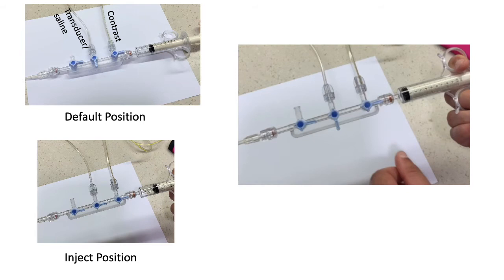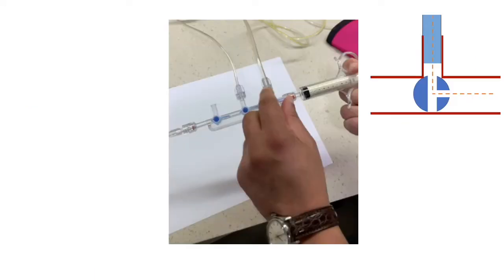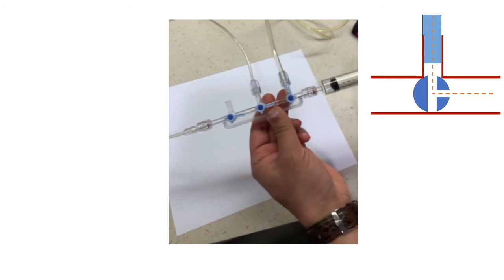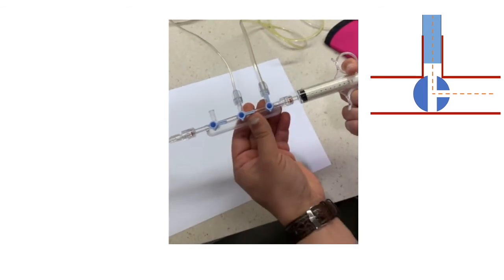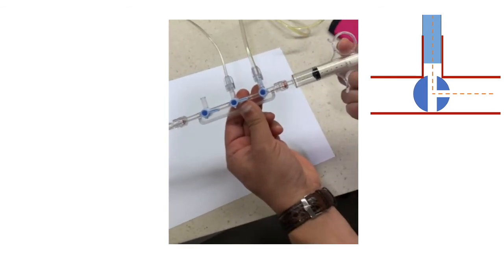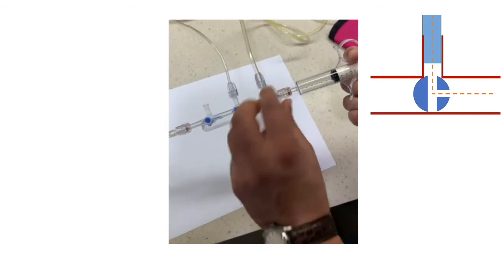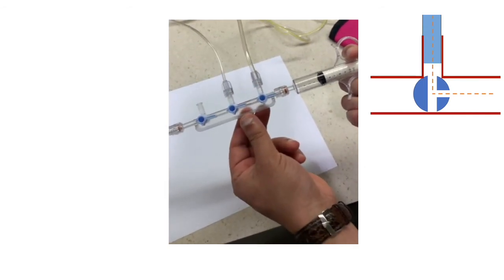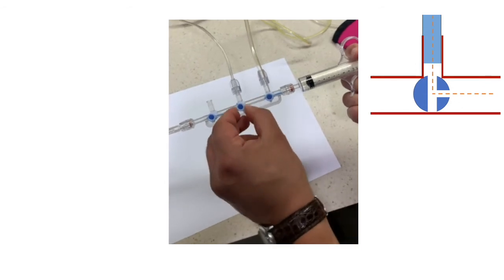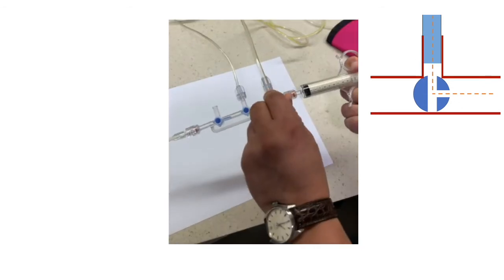There is a default position in the video. And here we demonstrate how turning the right valve upwards will allow communication with the contrast port, which allows us to withdraw contrast. Then we can go into inject mode and inject forward. And now back to default position again.